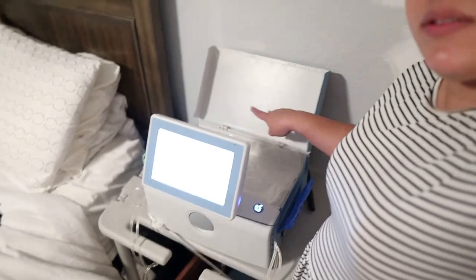Now this machine has to prime for about 24 to 25 minutes. Basically, all the fluid in the bags is going to fill up and warm up in this bag sitting on top. By warming up the fluid, when it goes into Daniel's body it won't make him cramp — we don't want cold fluid going in, and we obviously don't want air going in either. Sometimes he still does cramp and has to take a warm shower to help, but for the most part he does pretty well.